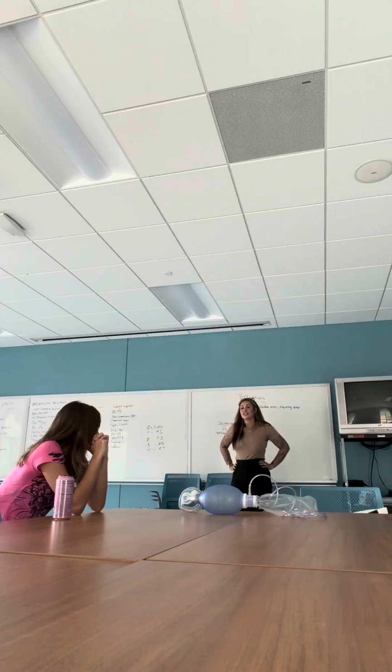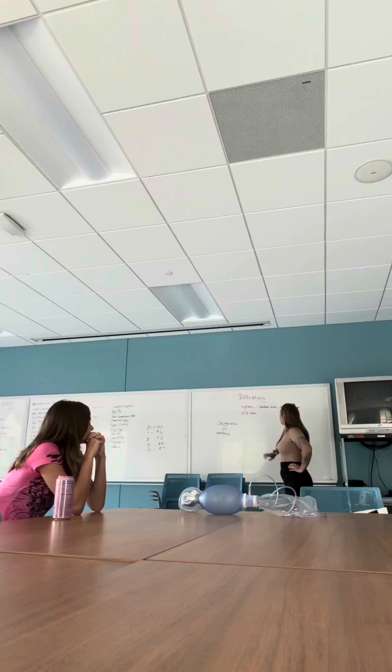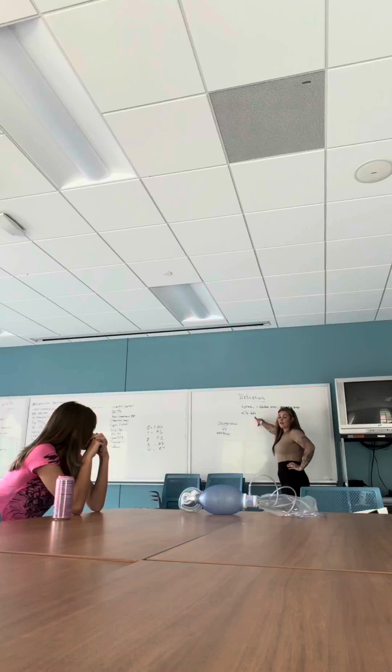My name's Tamara Tudor, and today we're going to go over a bag valve mask, or a BVM. Cases that would indicate using a BVM would be apnea, cardiac arrest, respiratory arrest, and a respiratory rate of 8 or below.